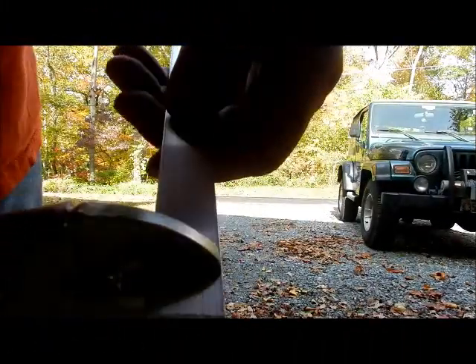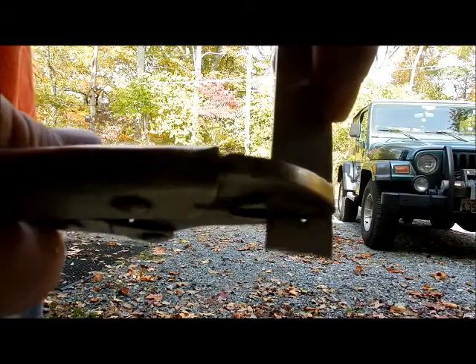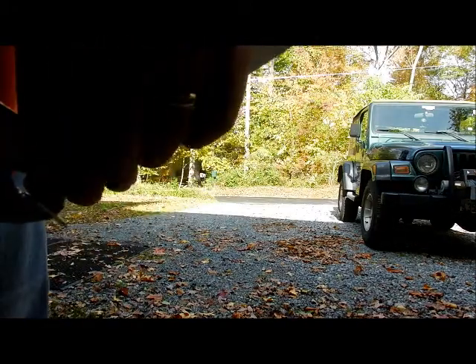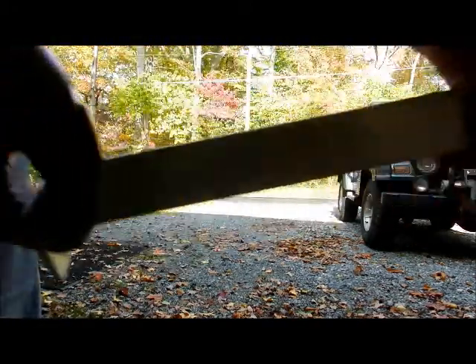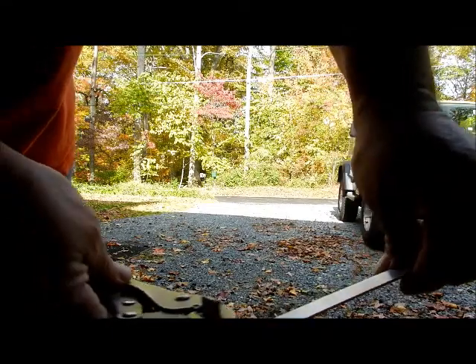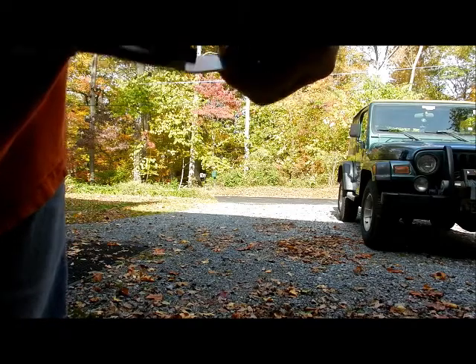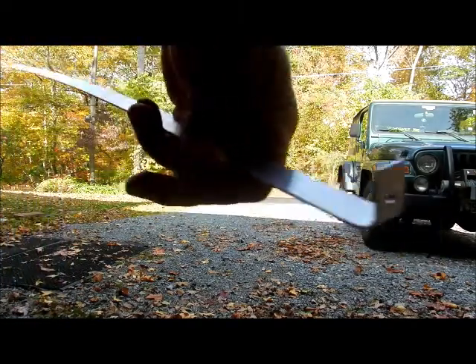You don't want to jab the driver of the wheelchair in the back. I grabbed a piece of vice grips — the hole is right there. I'm pulling this up. This is aluminum, so it bends very easy. I want to make it kind of like a 90-degree angle, and that's what I've done there — a 90-degree angle.